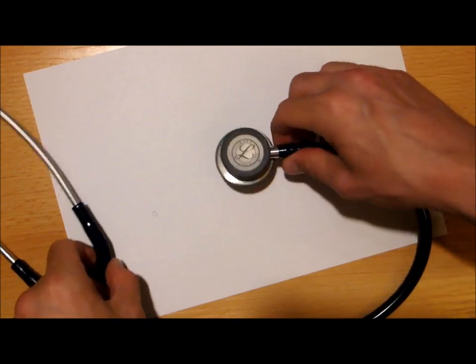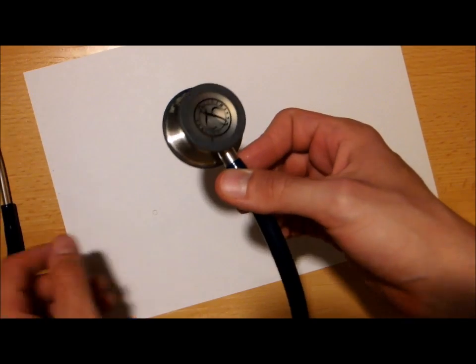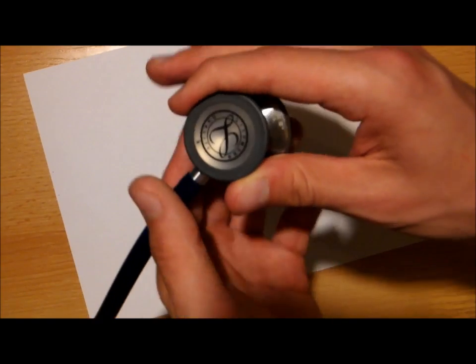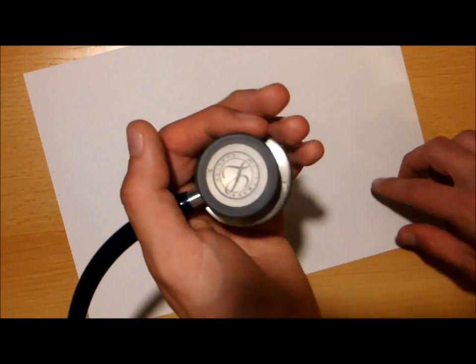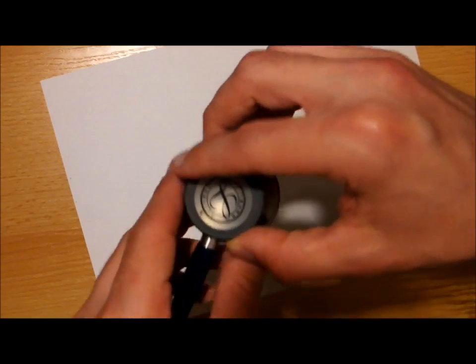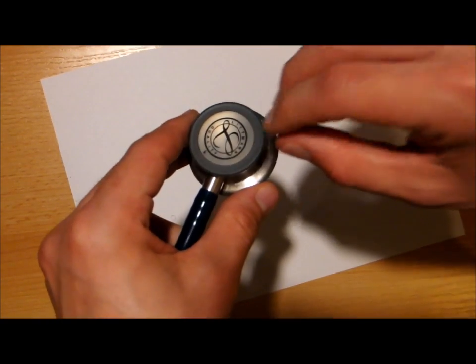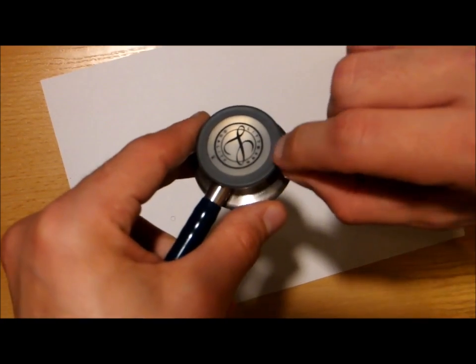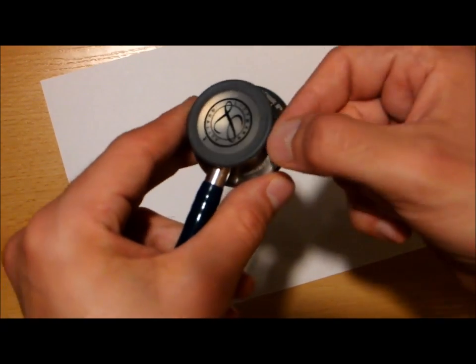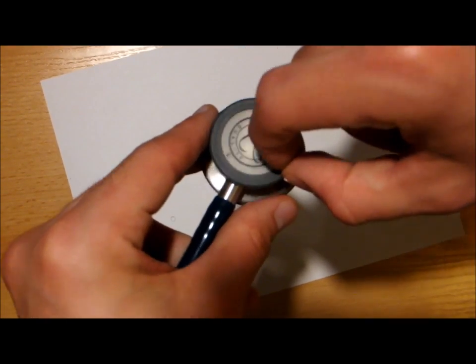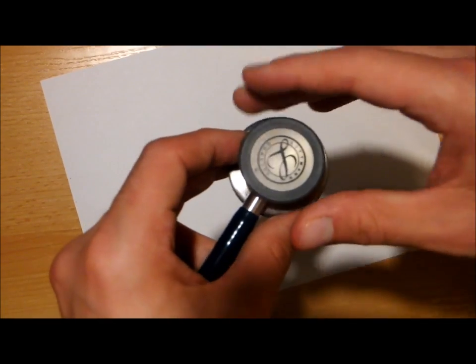The trick is to try to avoid damaging those precious parts of the stethoscope, so it's in the way you hold it. Because it's not that easy when they say to pinch it, I didn't know where should I put my fingers, or should I pinch it from the bottom or just on the top. I was afraid to damage the diaphragm.